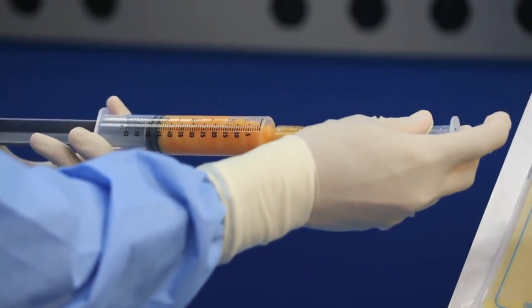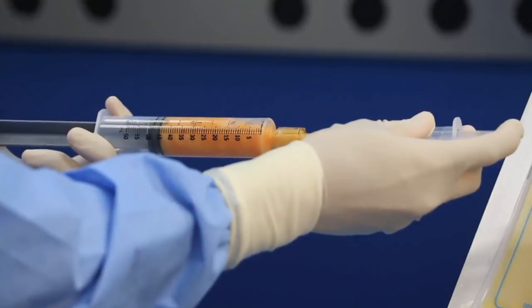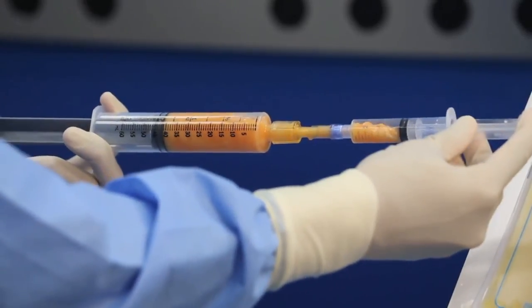Now that the two syringes are connected, transfer the graft from the Toomey to the luer lock syringe.